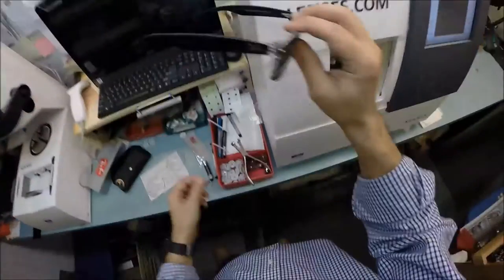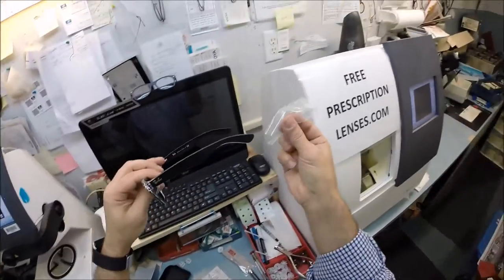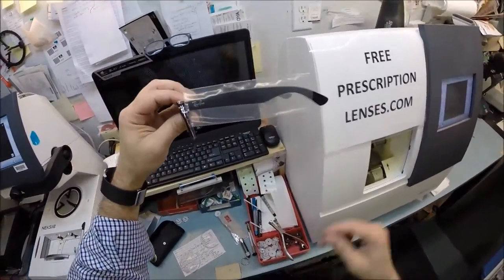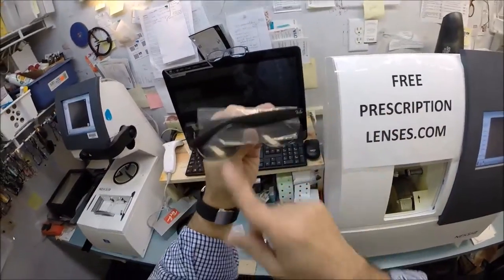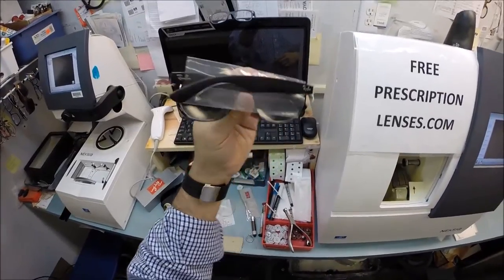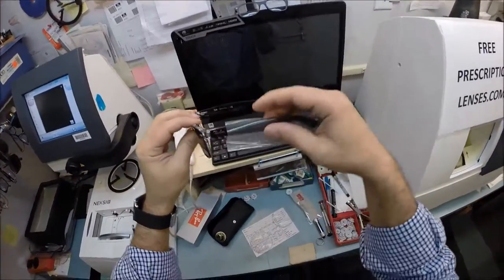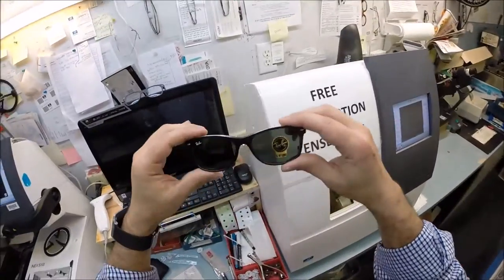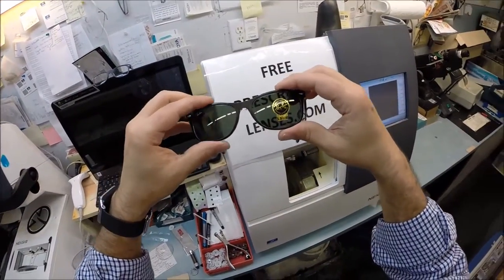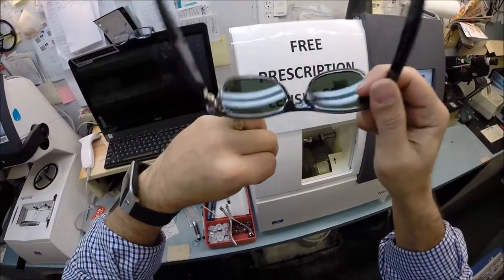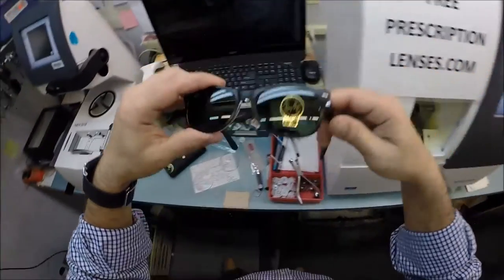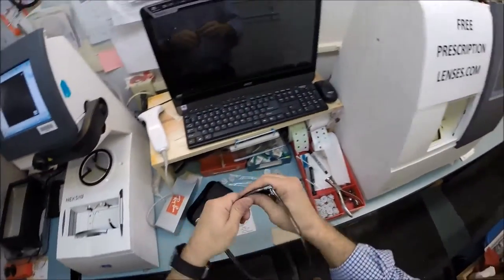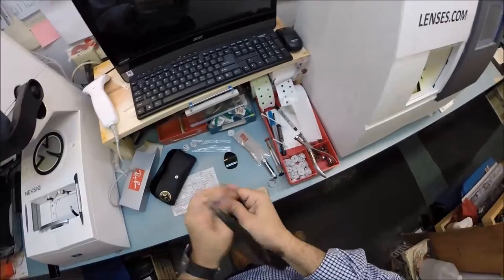So this is your frame. The little plastic sleeve that was on the left temple goes on there to protect the temples from rubbing together during shipping, and I'm gonna put it on there when I mail it to you. These are the original heavy glass sunglass lenses. Let's go ahead and take out those heavy glass lenses now, pop them out, put them on the counter.